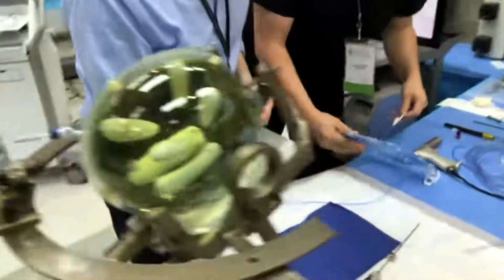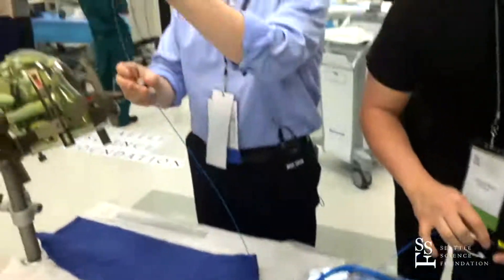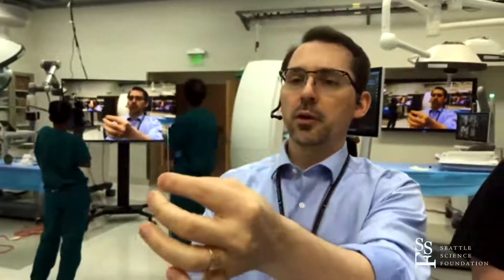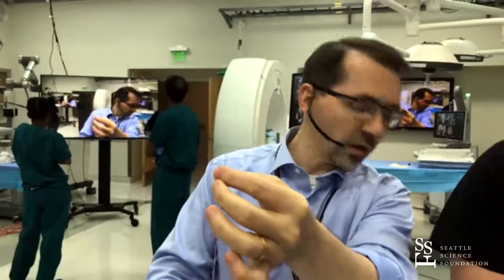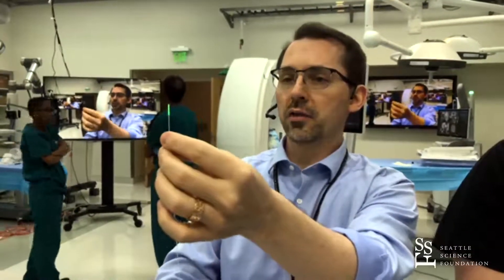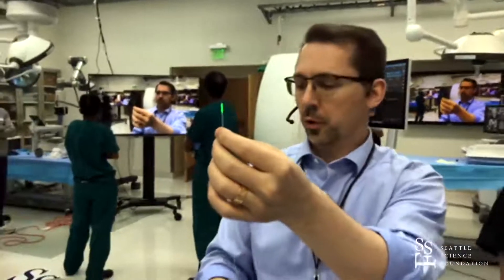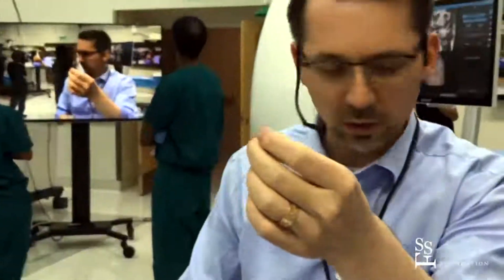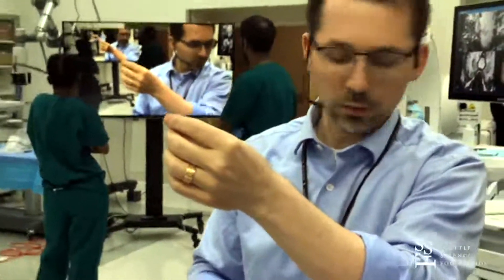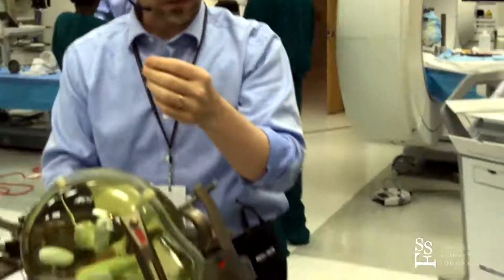This is a fiber optic cable with a diffusing tip. You can see the green laser light coming into the diffusing tip from a laser pointer. If we were actually doing laser ablation, this would be hooked up to the 15 watt laser source, which would burn your eyes — so we're not doing that. We'll feed this down into the cannula.